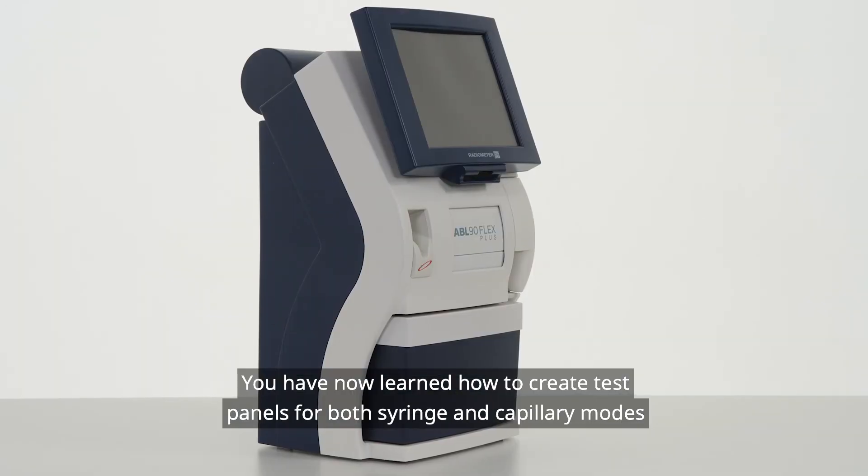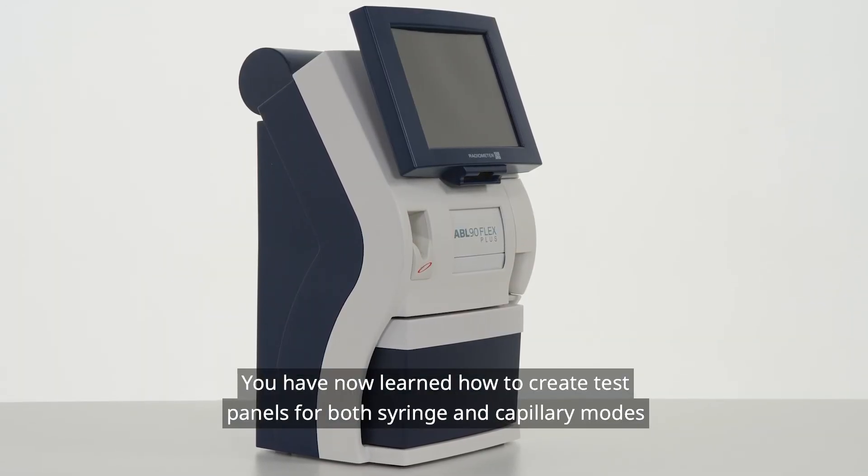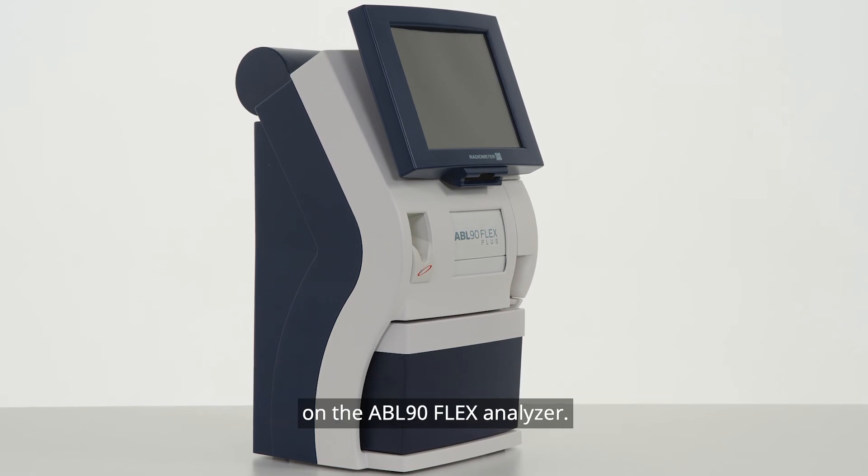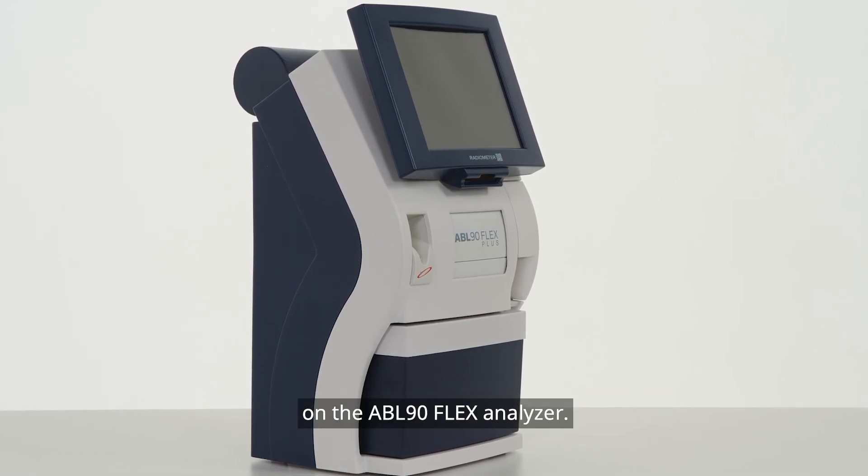You have now learned how to create test panels for both syringe and capillary modes on the ABL-90 Flex Analyzer.